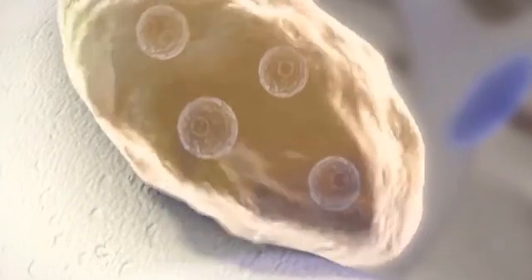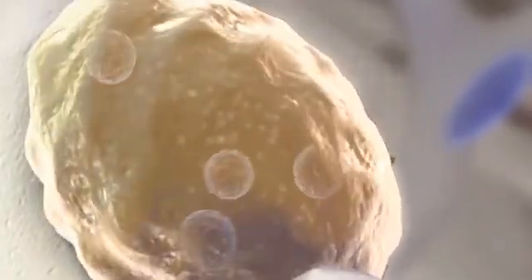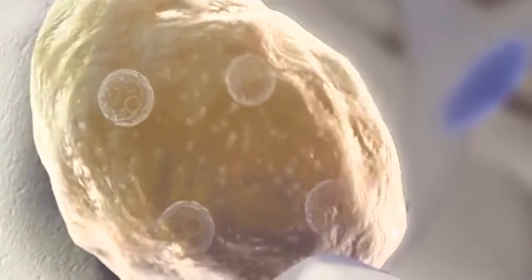Once bone formation has occurred, osteoclasts begin the normal bone remodeling process, resorbing the bioactive glass while creating fully functional bone without any of the former bioactive glass particles remaining.